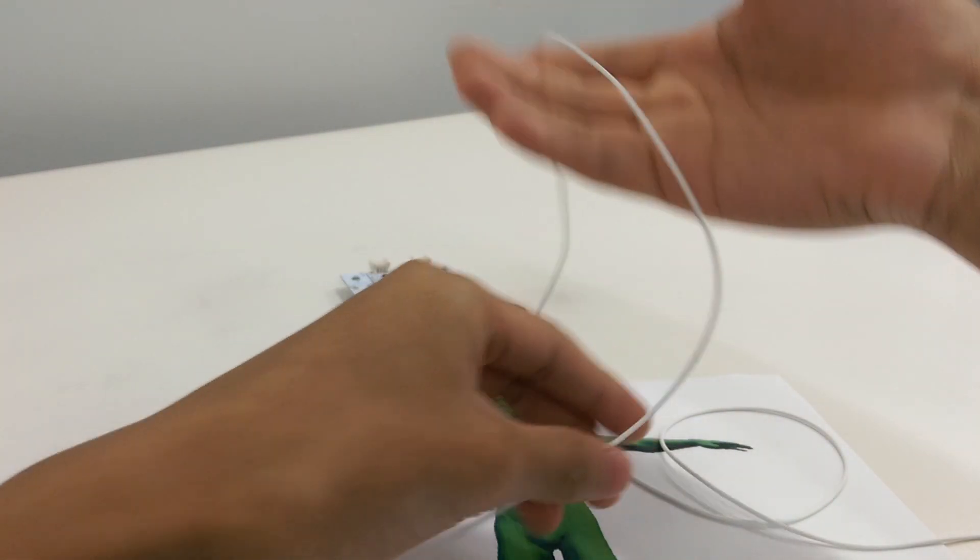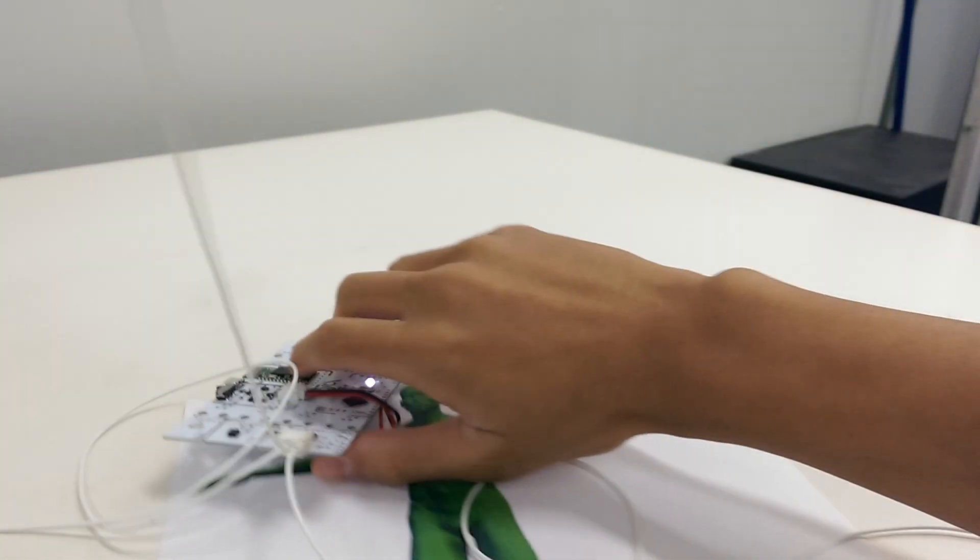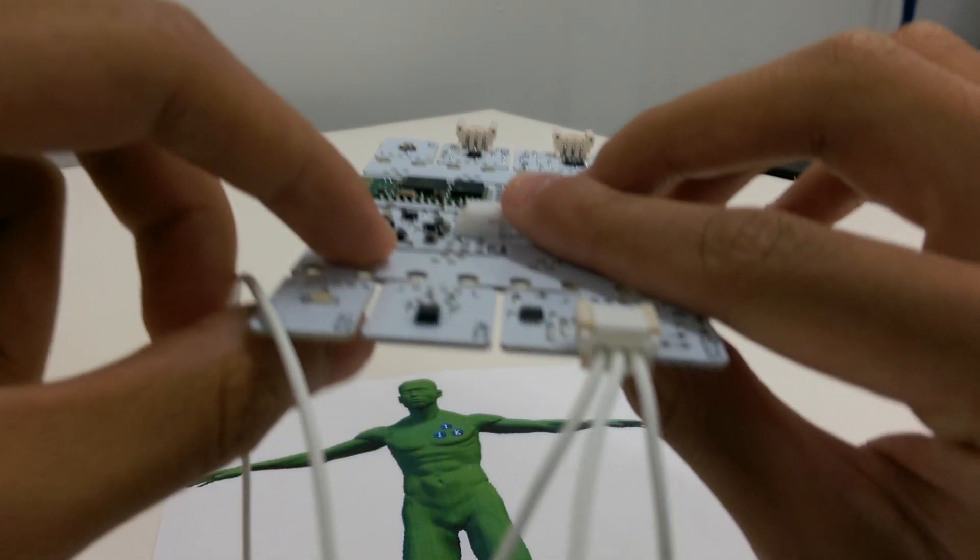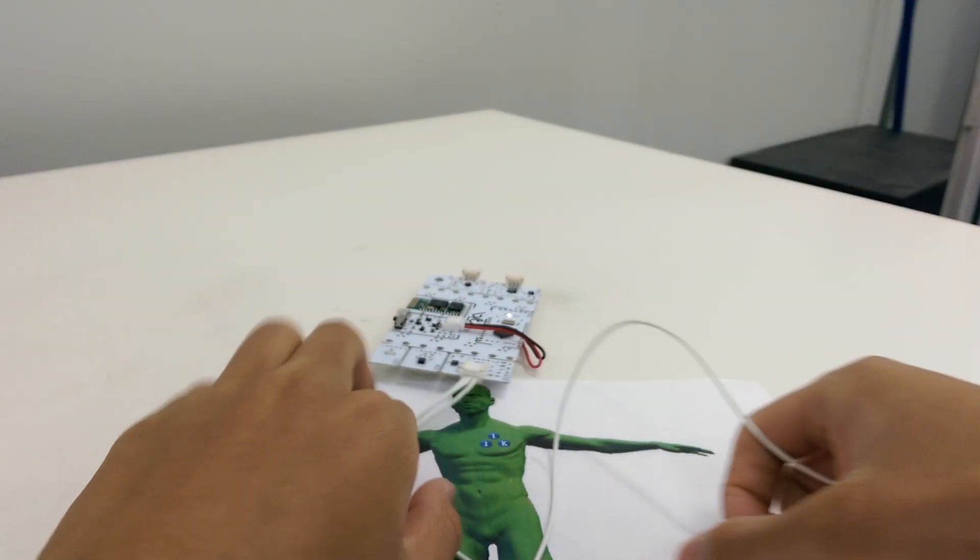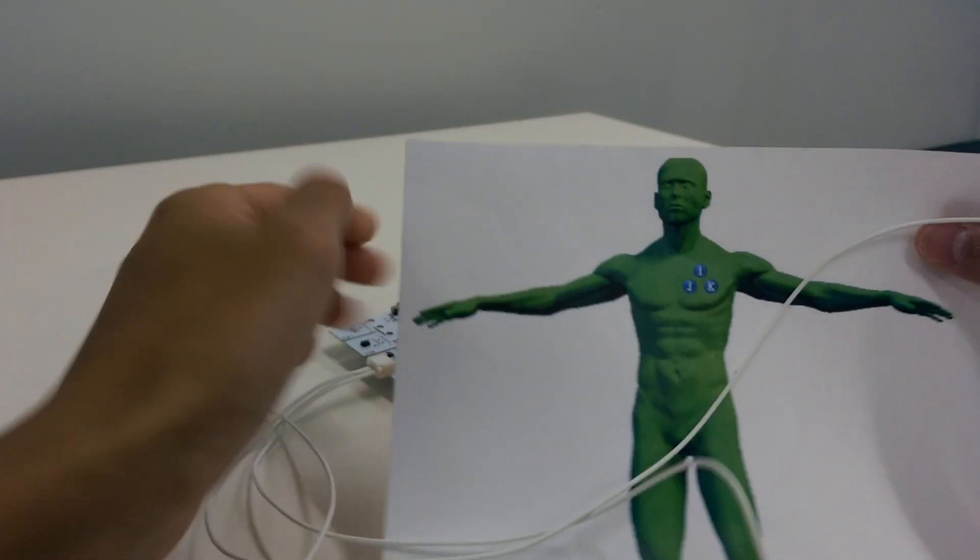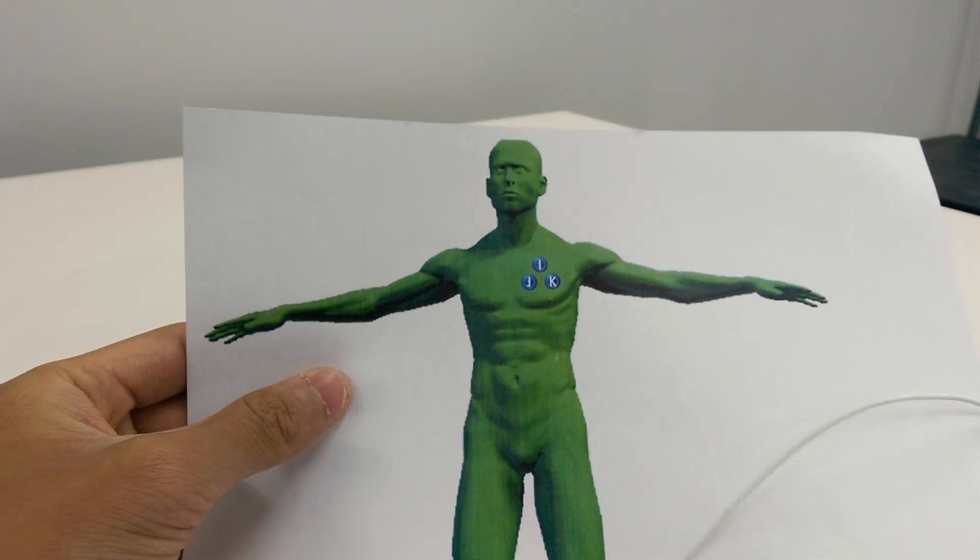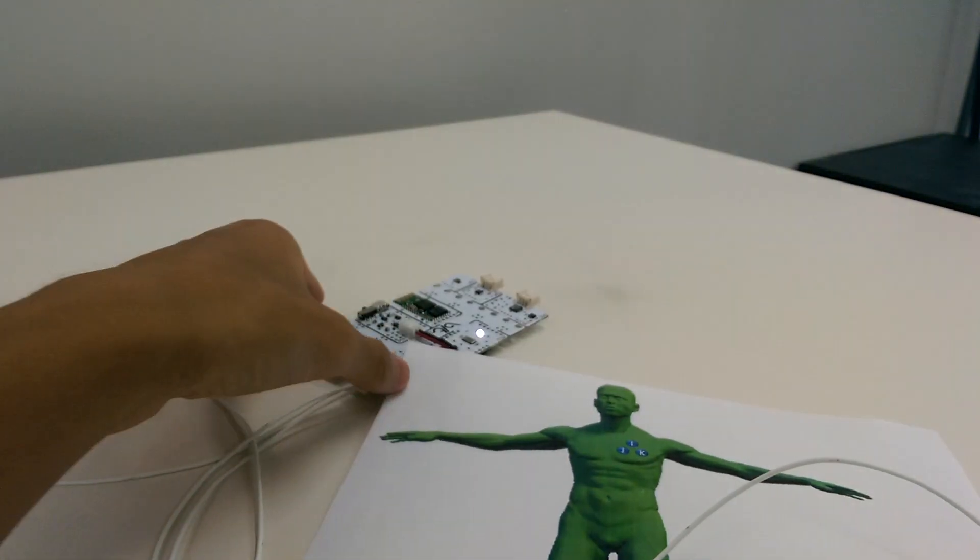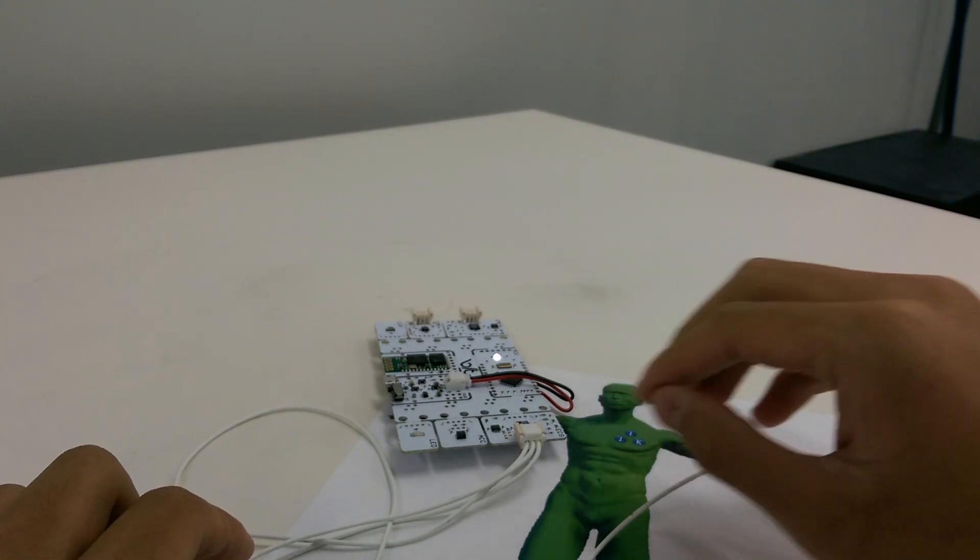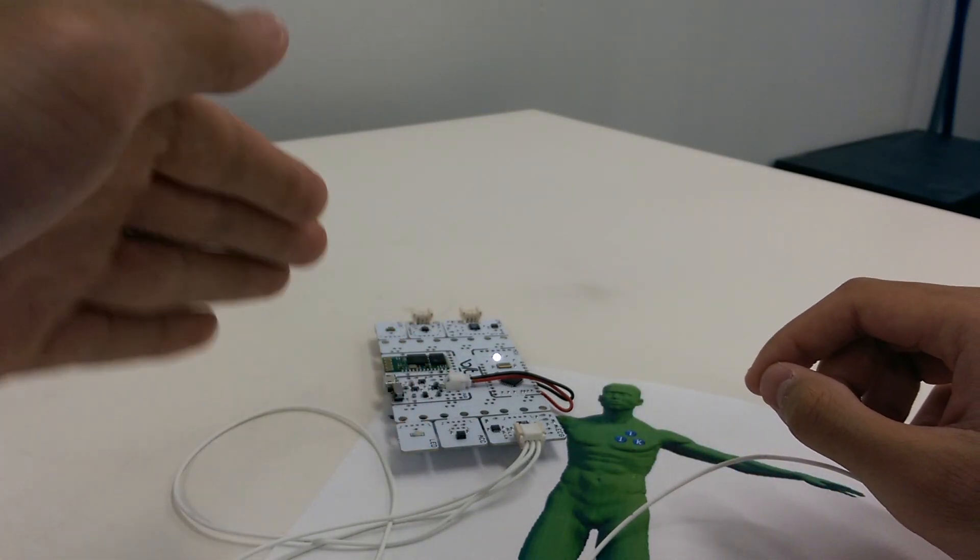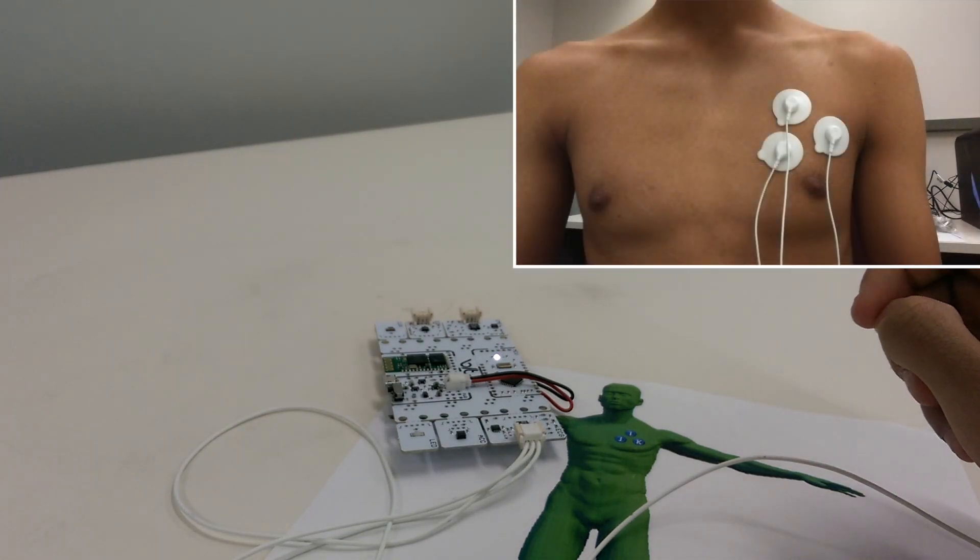So looking specifically at the middle one right here, if you look closely, you can see the three cables. The middle one corresponds to the top of the triangle right here, so I is the center one, and then the right side J corresponds to the right side of the three. And the left side K corresponds to the left cord on the left side. It's pretty intuitive when it actually comes to putting on.